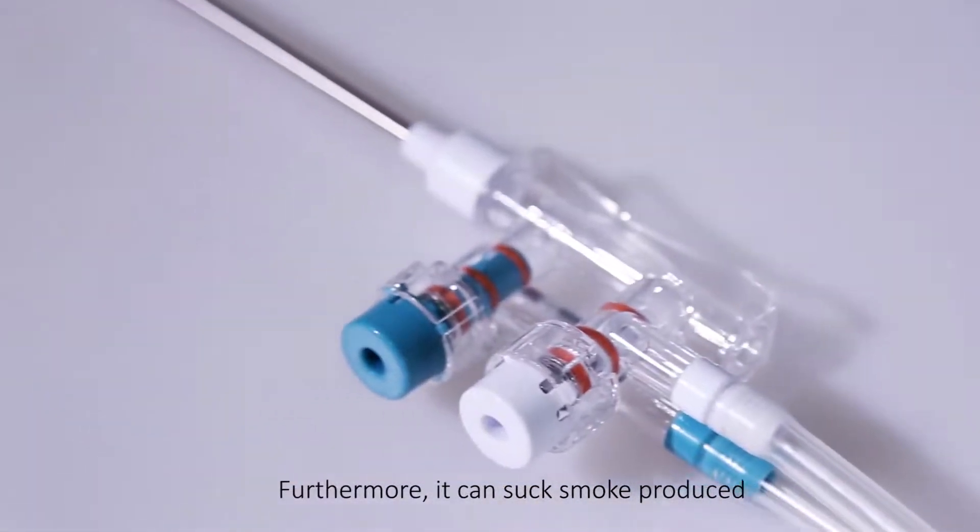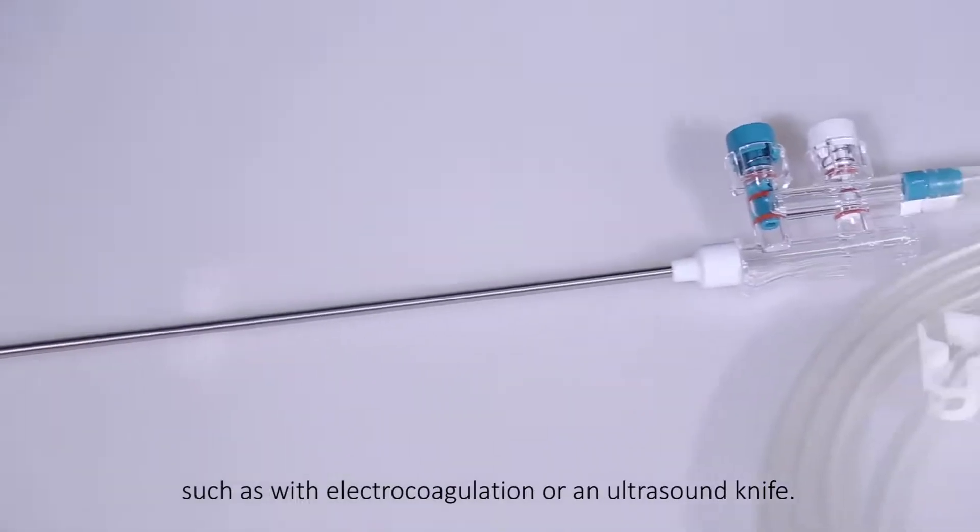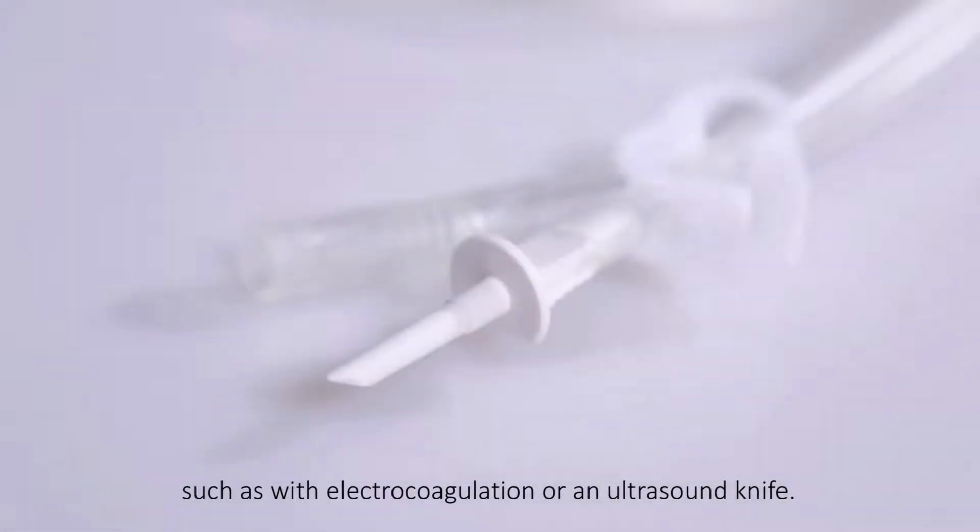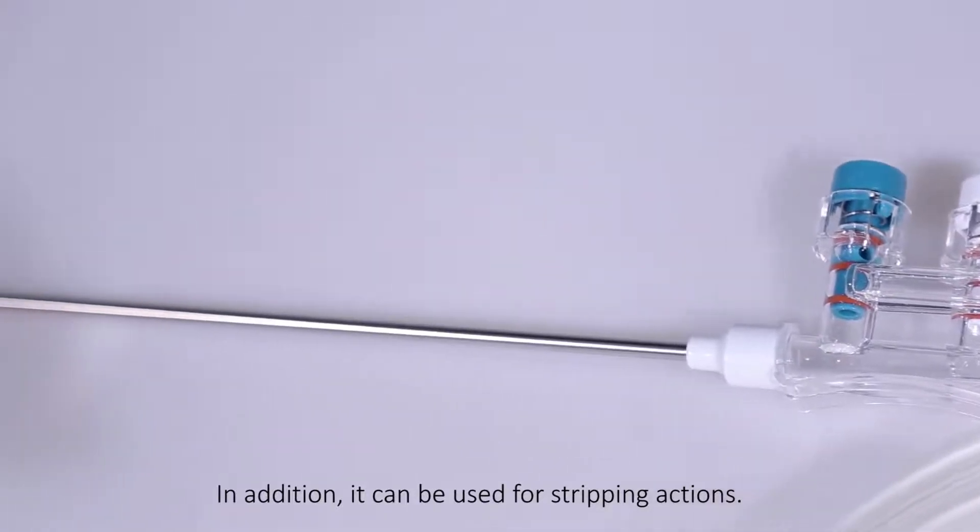Furthermore, it can suck smoke produced by electronic medical instruments, such as with electrocoagulation or an ultrasound knife. In addition, it can be used for stripping actions.